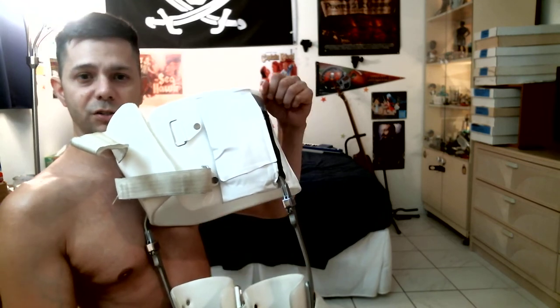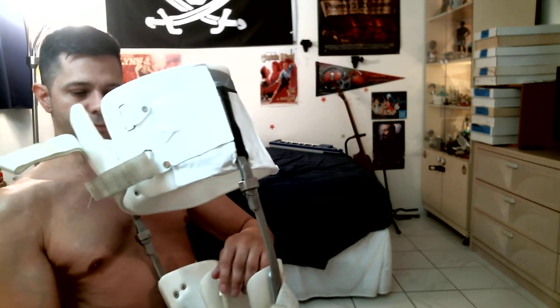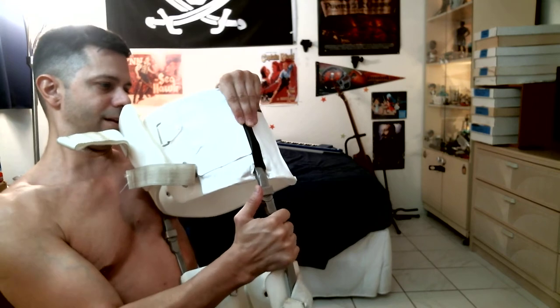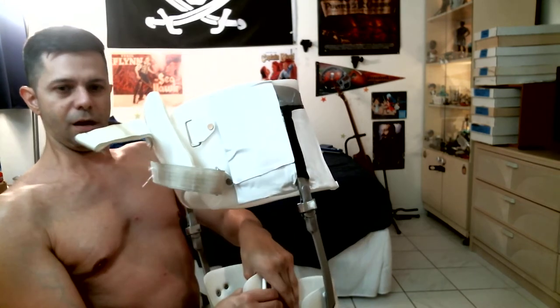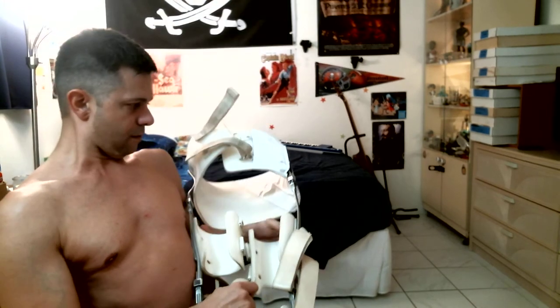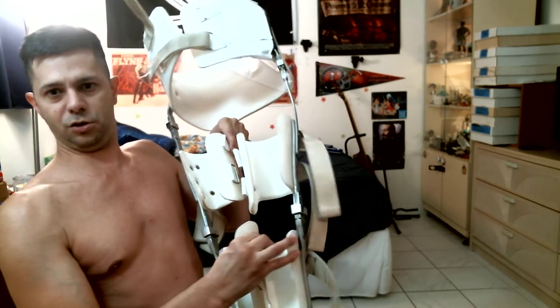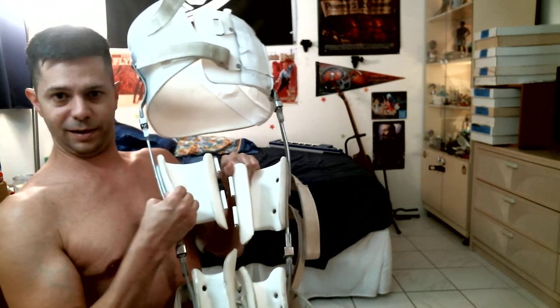What happened was it started pulling apart from that. I'm trying to keep it together and I'll probably put some more flex tape on it so it hopefully doesn't get too much worse. But at some point I will have to bring it to a brace maker to either get a new pair or get this pair fixed. The leg should not wobble like this — it should be sturdy, like this other one which I can't move at all. That's how this leg should be.